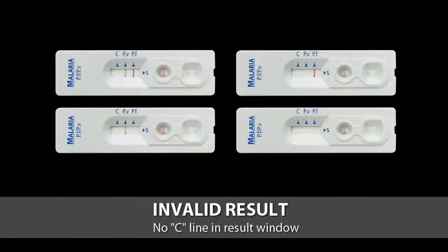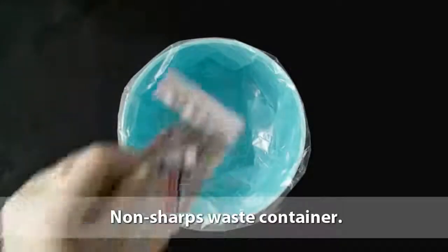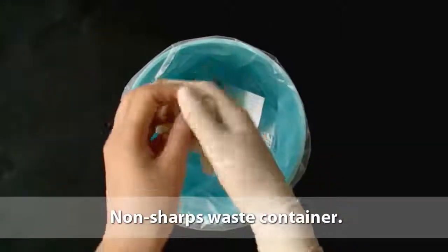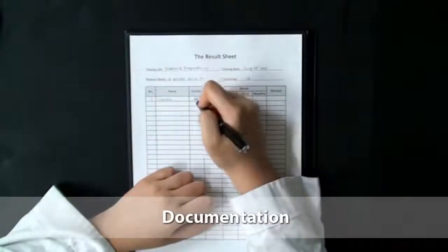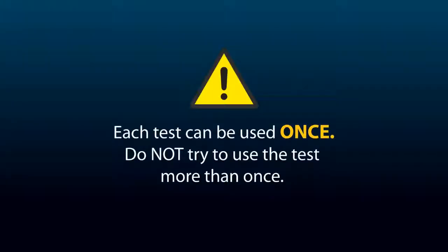If no line appears near the letter C, conduct the test again with a new test device and new inverted cup. Dispose of test materials such as the test device, gloves, alcohol swab, desiccant, and packaging in a non-sharps waste container. Record the test results. Now remember, each test can only be used once. Do not try to use the test more than once.